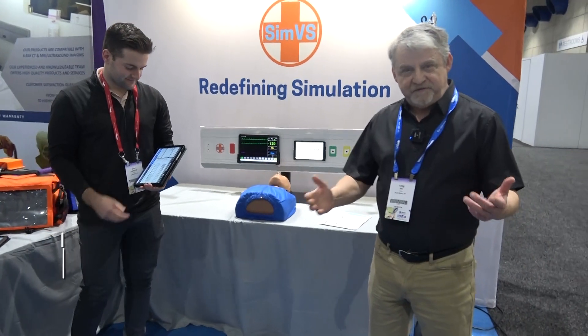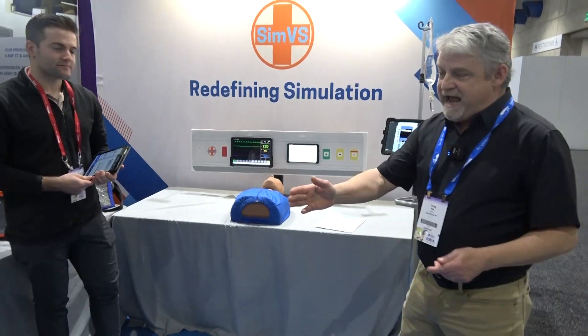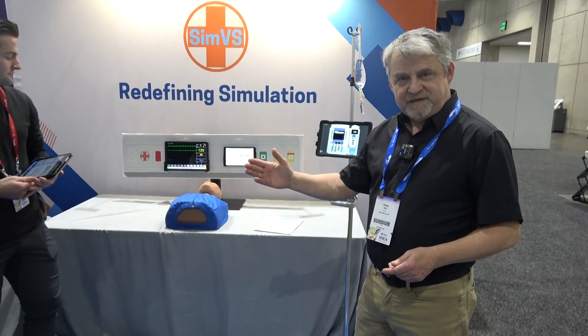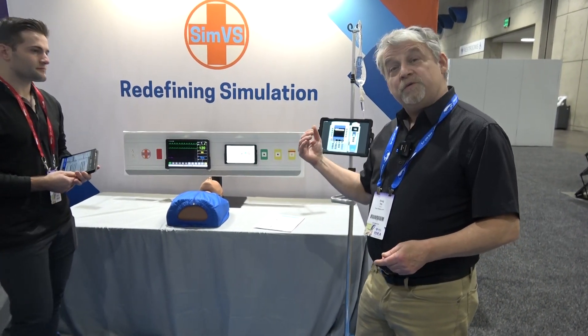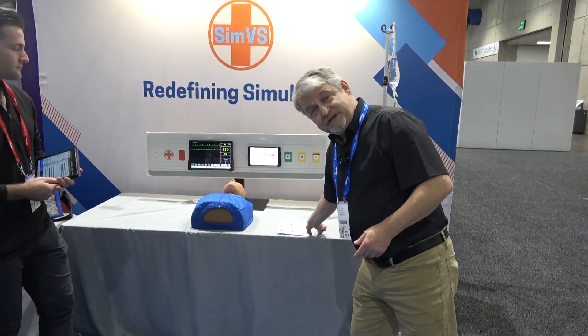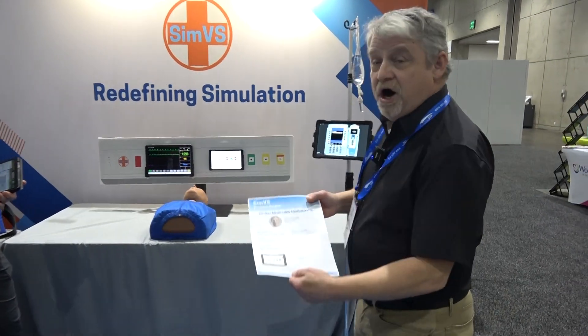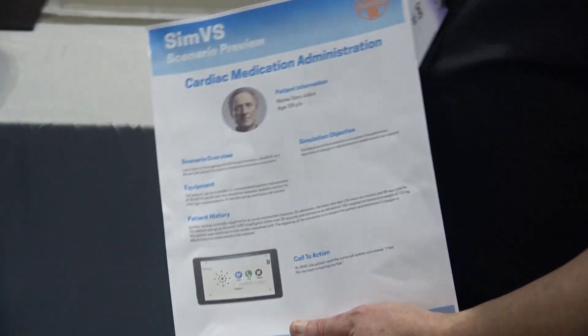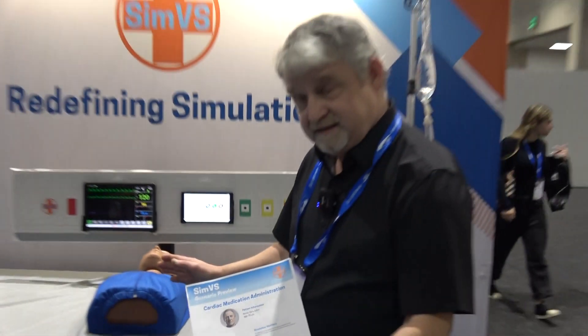Hello everyone, my name is Greg Viss with SimVS, here with my colleague Jake DeBayette. We'd like to provide you with an overview of our system today. We have a diverse ecosystem for simulation, and today we are going to run a cardiac medication scenario. We're going to use three of our systems as we run this scenario.